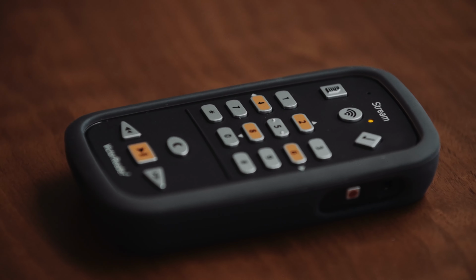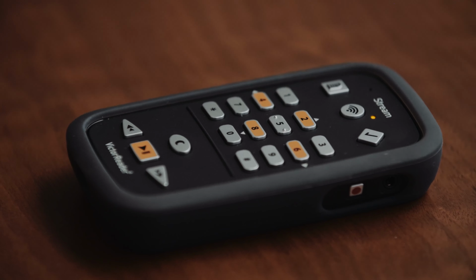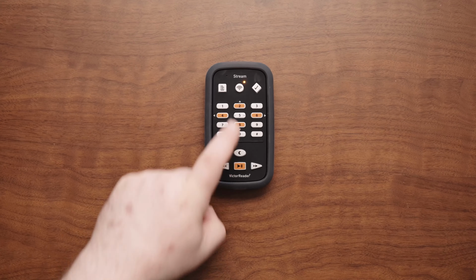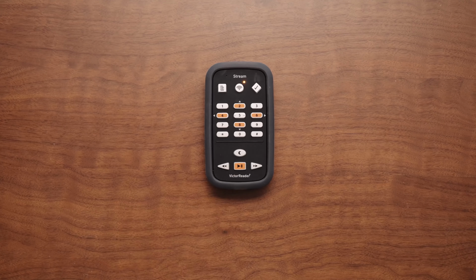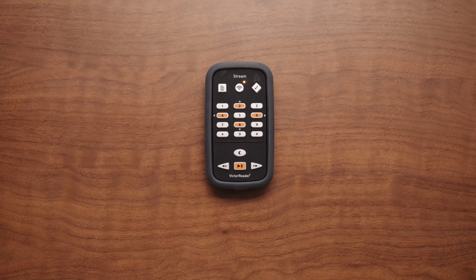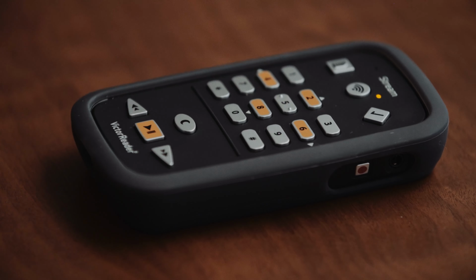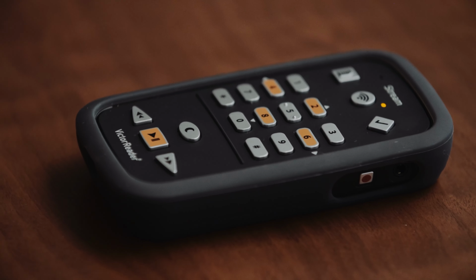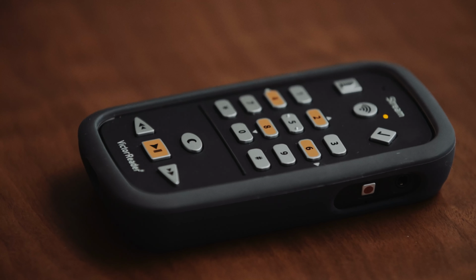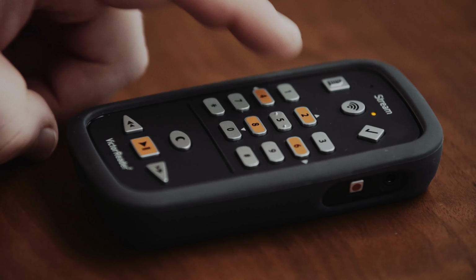The Announce Final Character Only method. Press the number keys 0 to 9 to type the text. For example, key 2 is used for letters A, B, C, and the number 2. Key 3 has letters D, E, F, and number 3. Key 6 has letters M, N, O, number 6, and so on. The space character is on key 0. Punctuation and special characters are on keys 0 and 1.